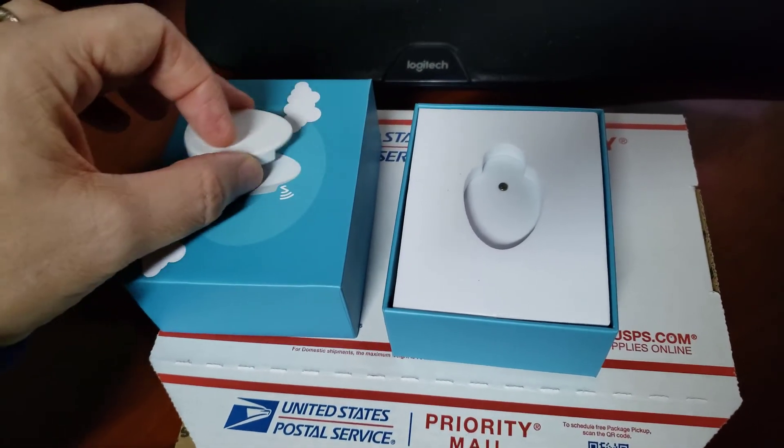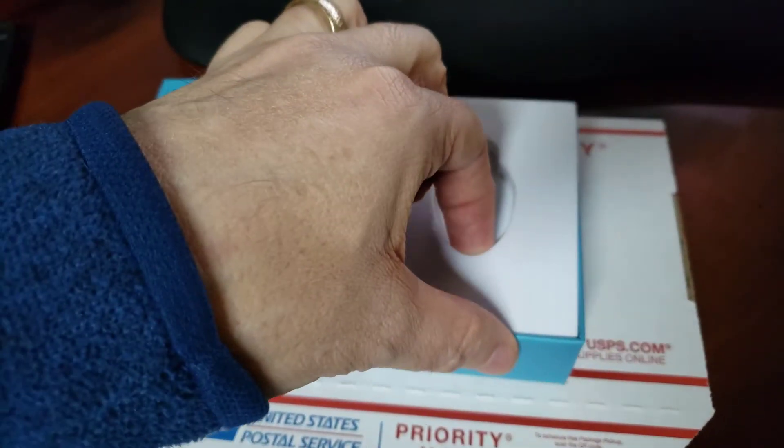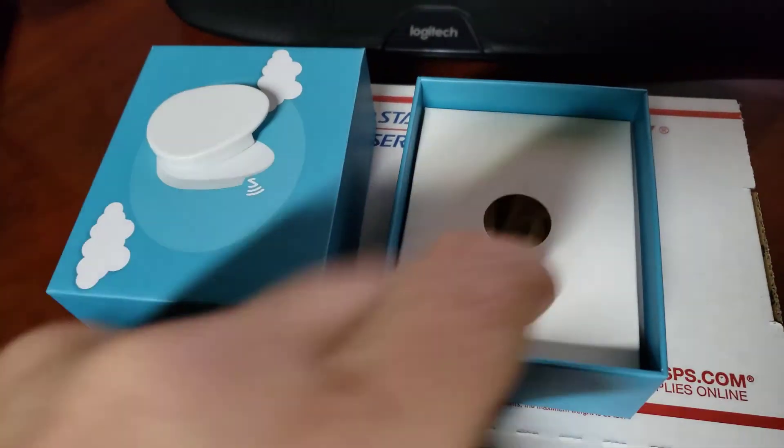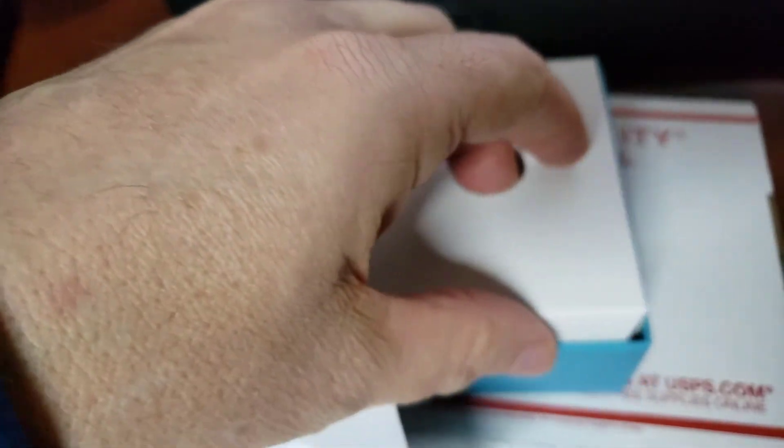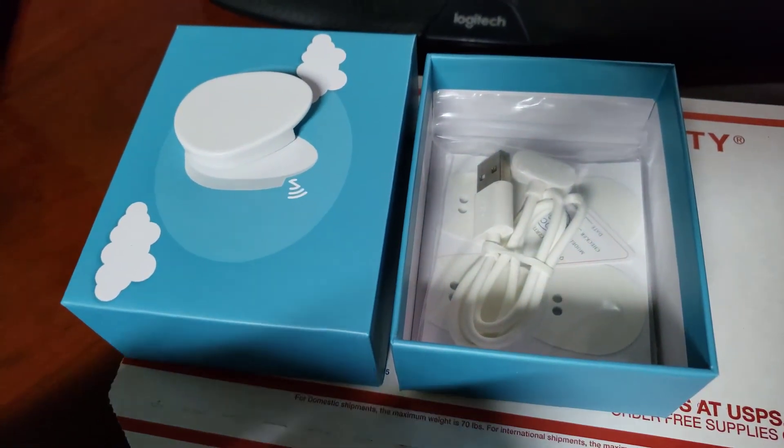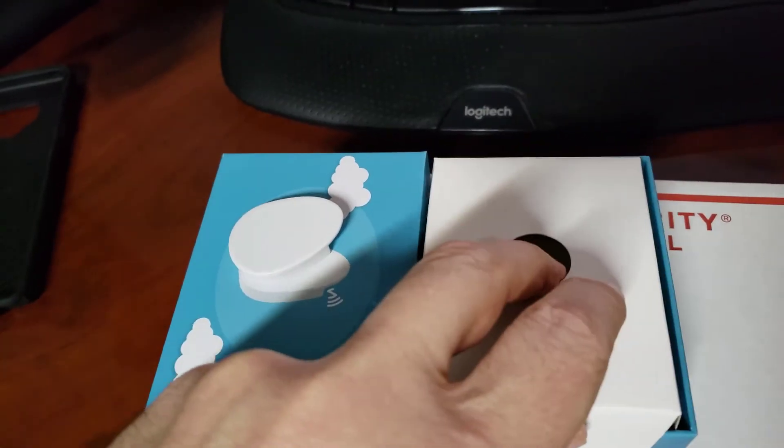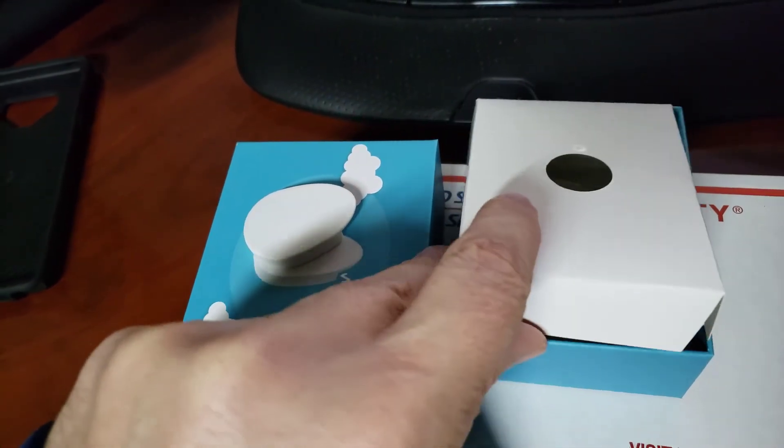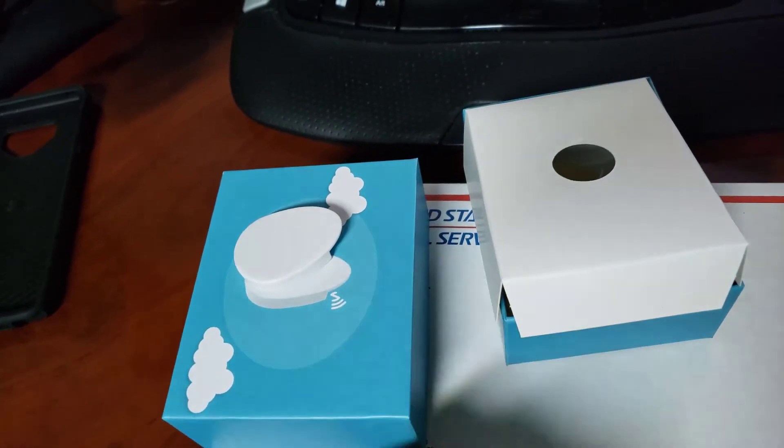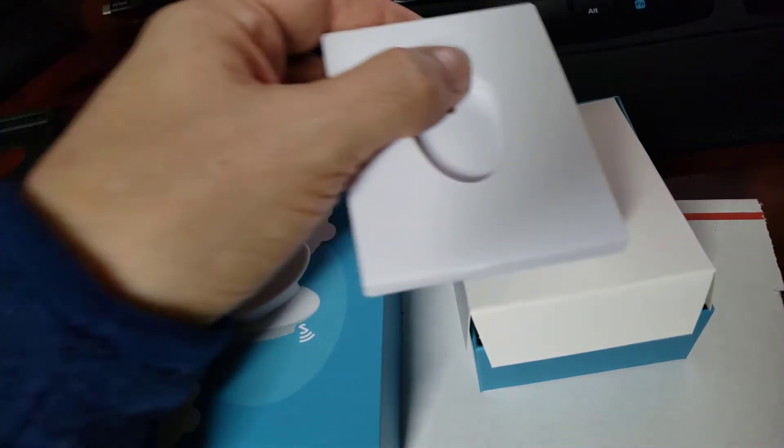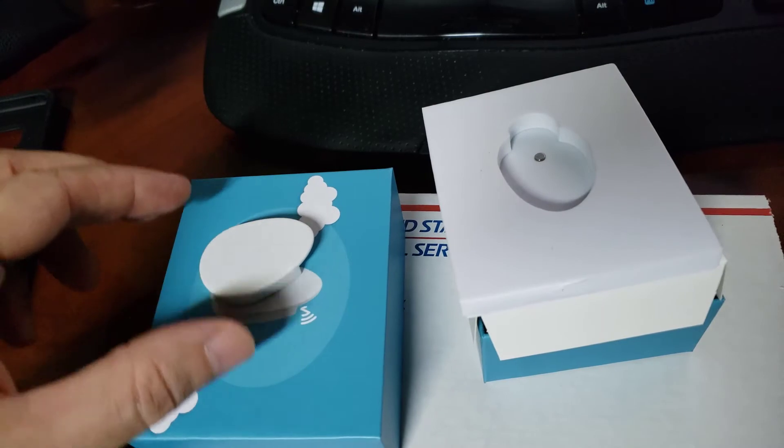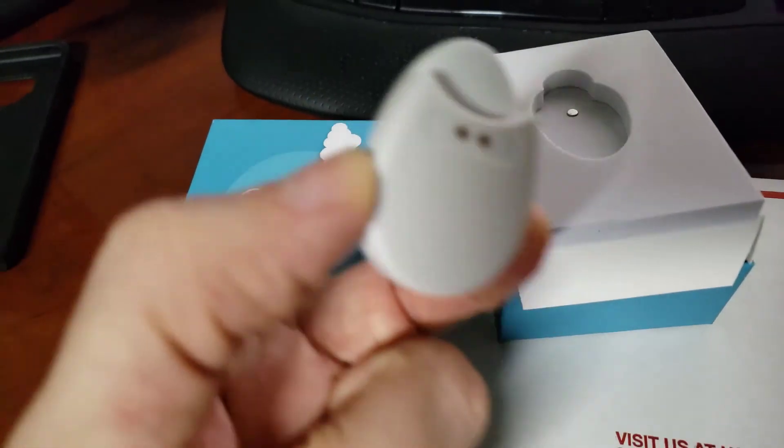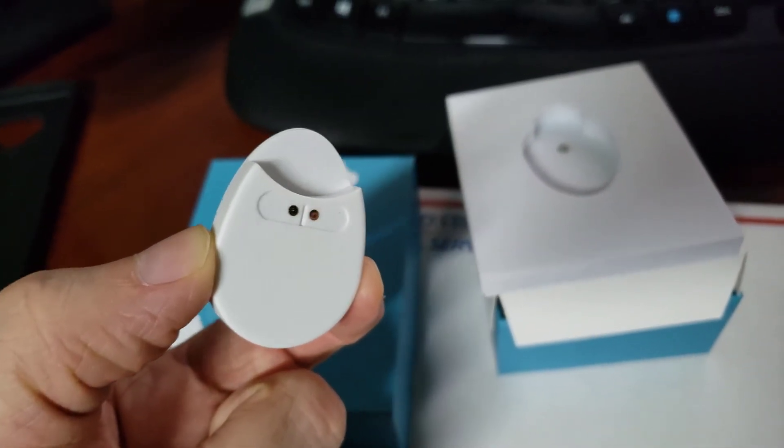Inside of here you have all kinds of information, the cable, the stickers, and everything that you need to get going. It's a full and complete kit. These are being retailed and sold at one hundred sixty-nine dollars, and you can get your bubble device at bubblecgm.com. Now let's dig into the software and see how this thing works and how it connects.